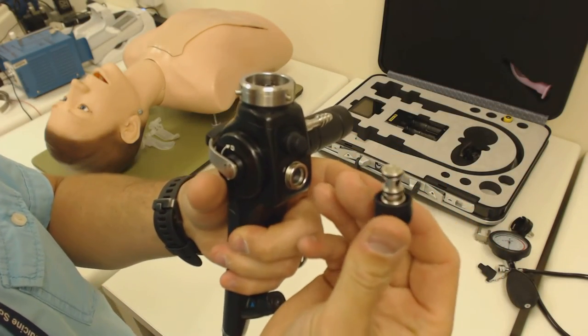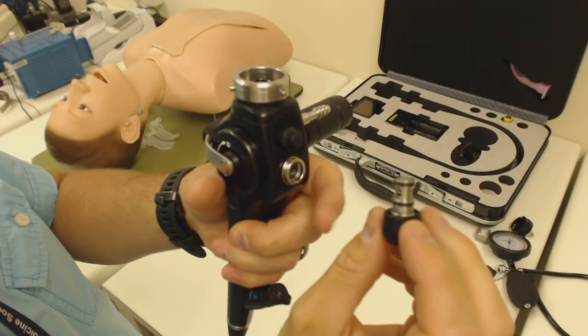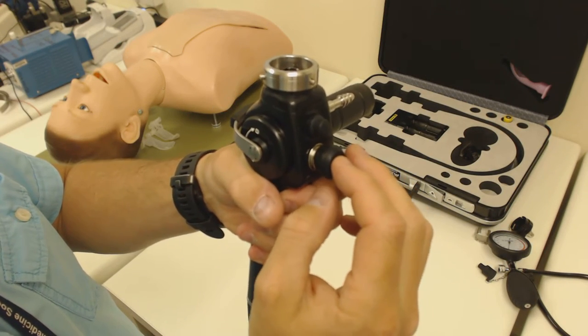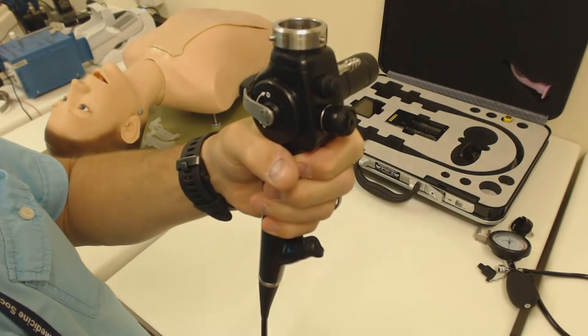Bear in mind that this whole assembly can be removed and it's got a set of quite sensitive O-rings there. Be careful that you don't take this out or lose it, but it can be removed for cleaning purposes by the technologists.